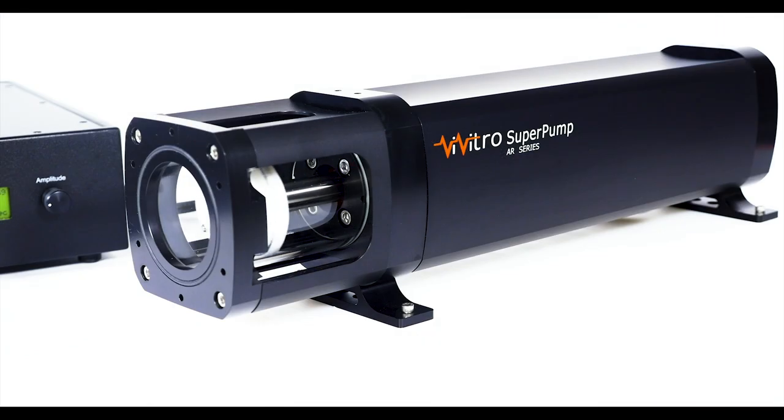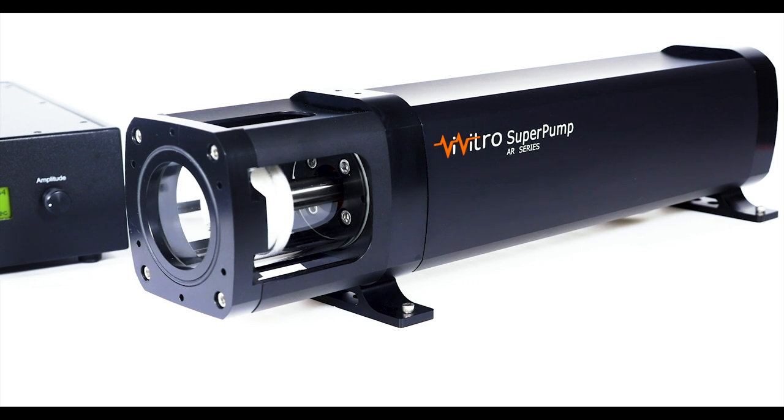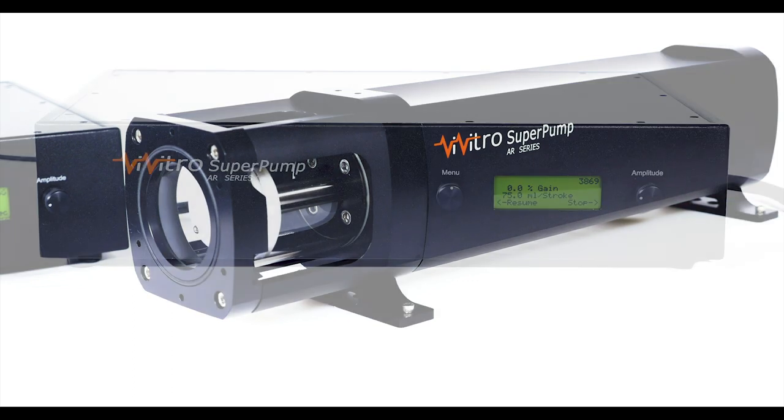The actuator is a pre-lubricated, sealed system offering quiet, maintenance-free operation.